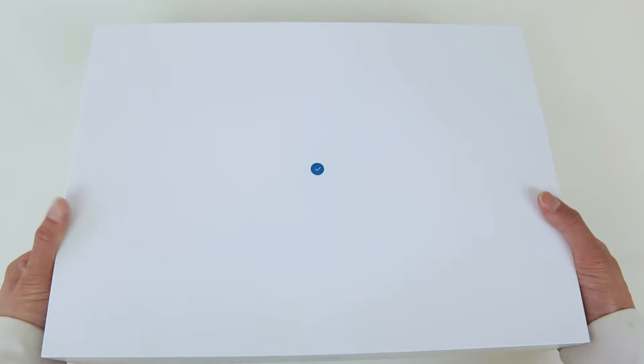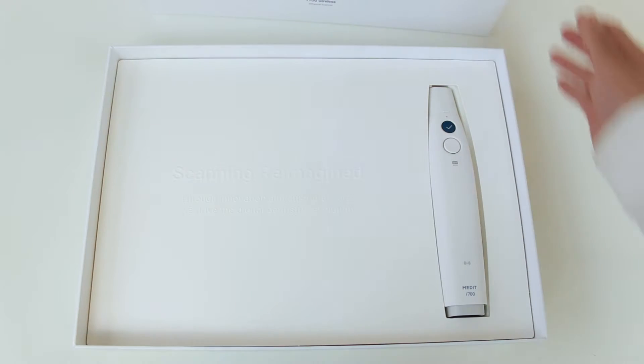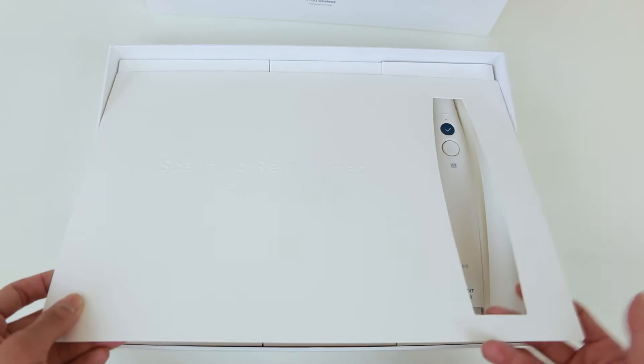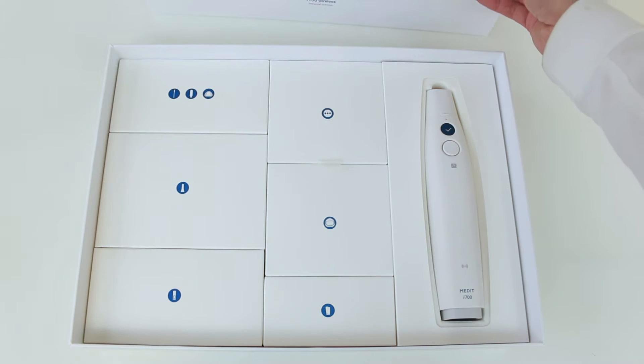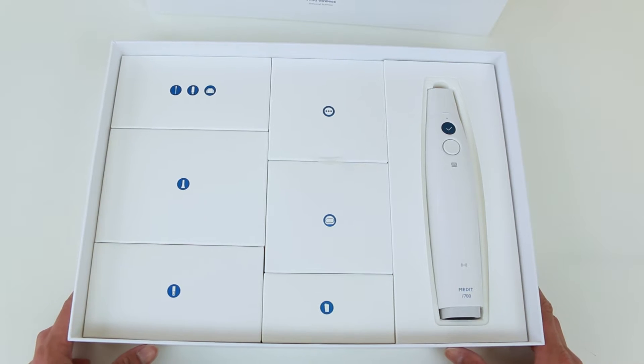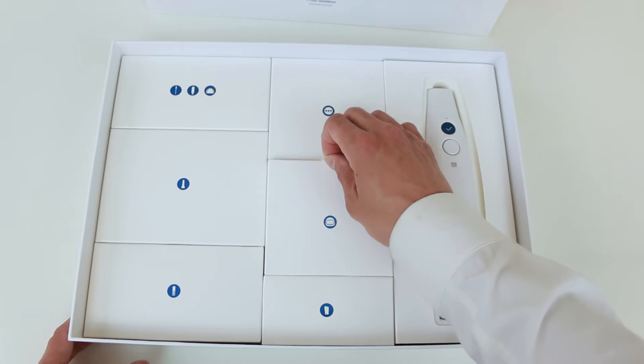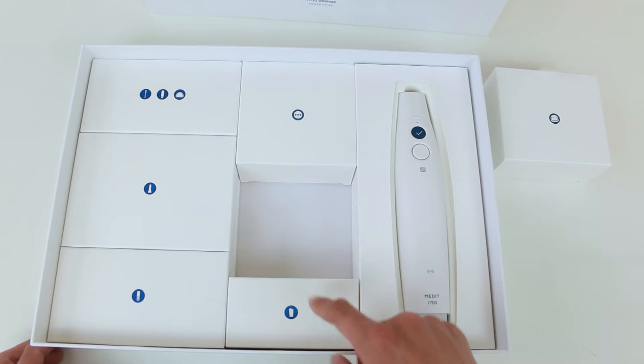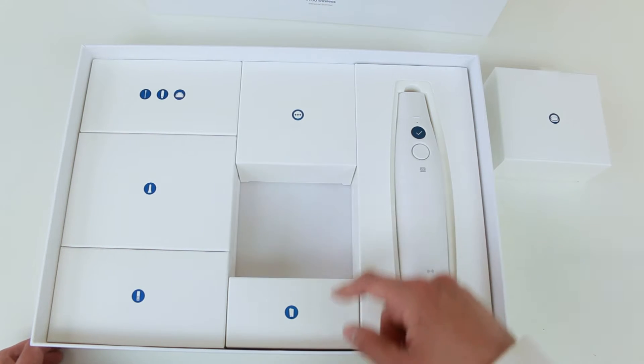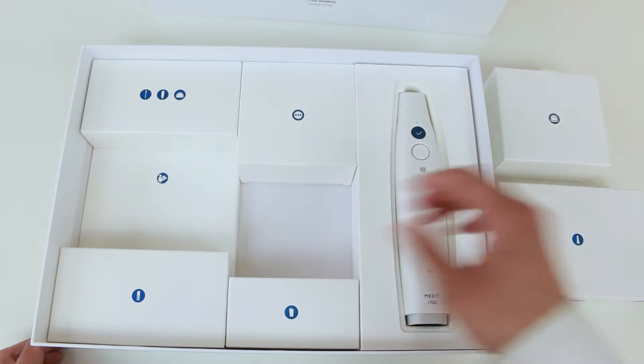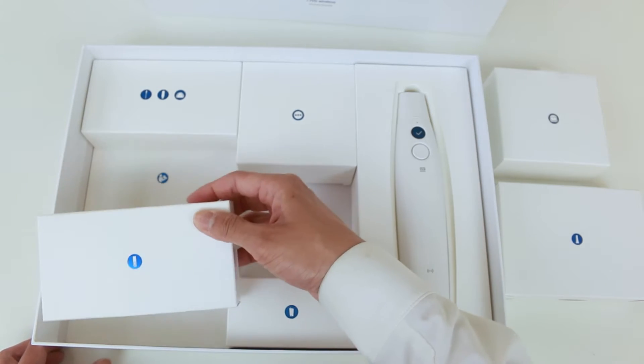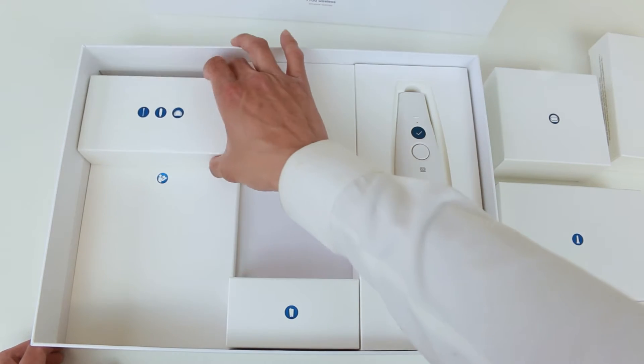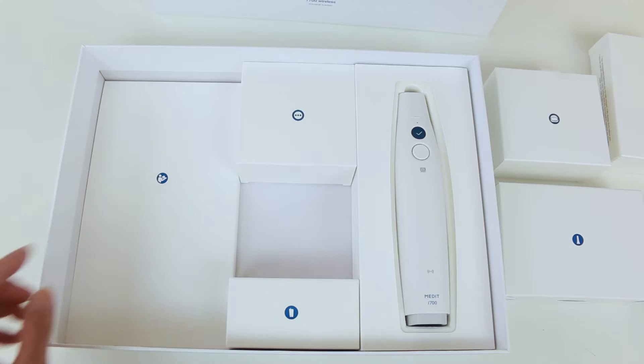We're going to just lift the cover and put this to the side. Then we're going to notice the scanner. We can lift this cover exposing our first set of accessories. The one that you're going to want to remove first is your wireless hub. There's a small tab, we're just going to lift. And then this is your optional handle, battery charging station, scanner tips, three batteries, practice model and USB, and your user manual.